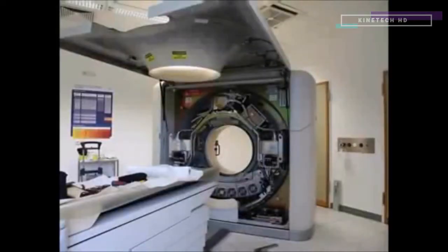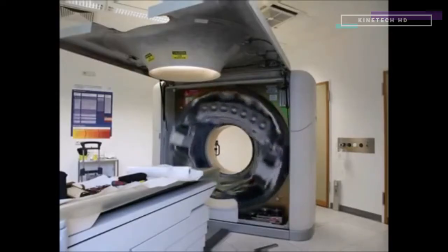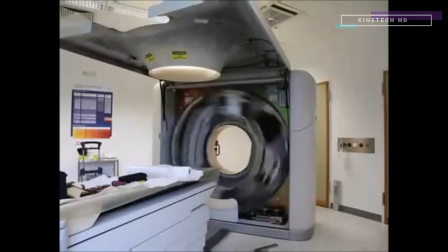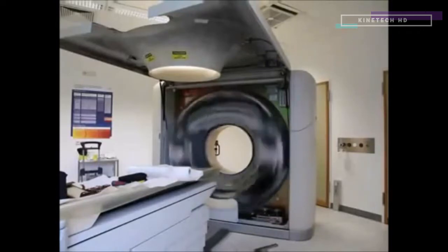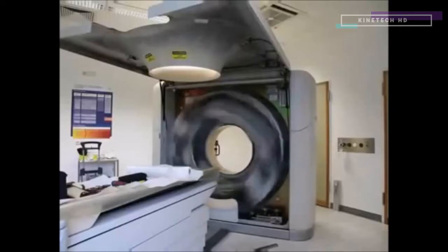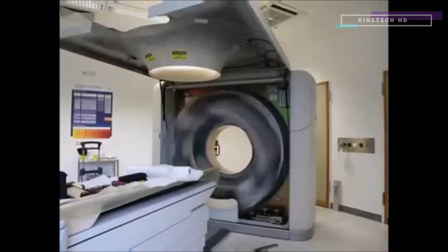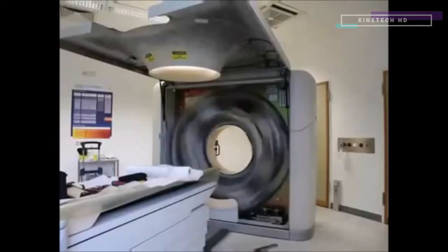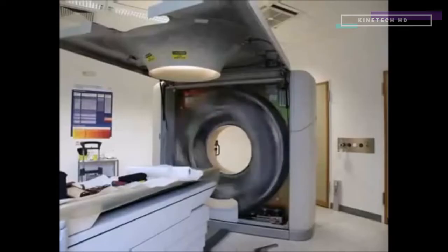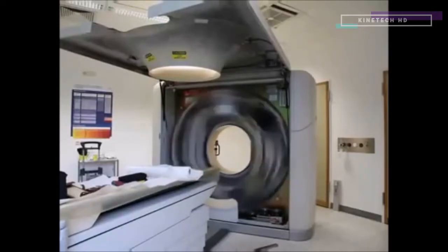X-ray computed tomography, or X-ray CT, is a technology that uses computer-processed x-rays to produce tomographic images of specific areas of the scanned object, allowing the user to see what is inside it without cutting it open. Digital geometry processing is used to generate a three-dimensional image of the inside of an object from a large series of two-dimensional radiographic images taken around a single axis of rotation.